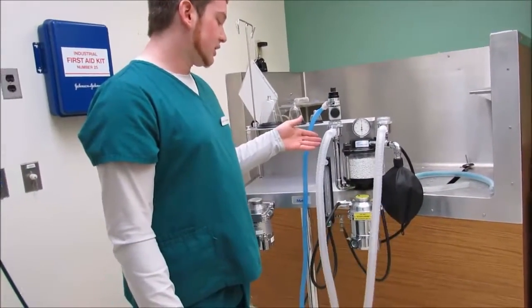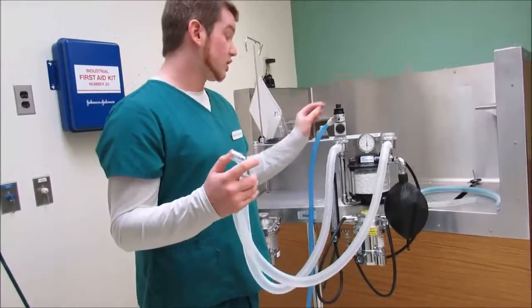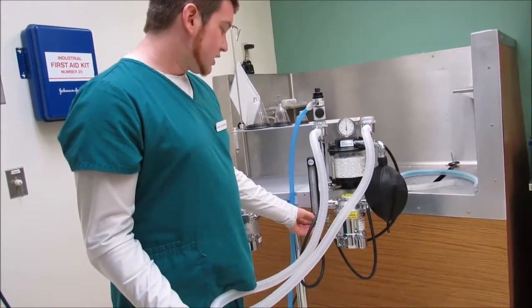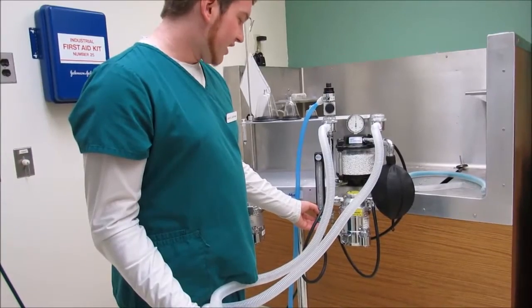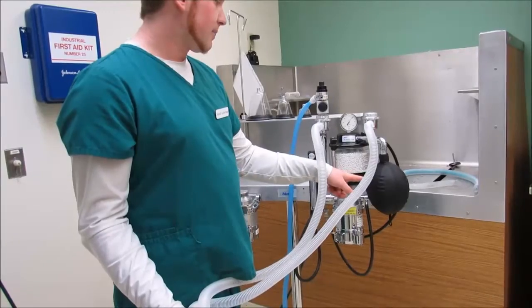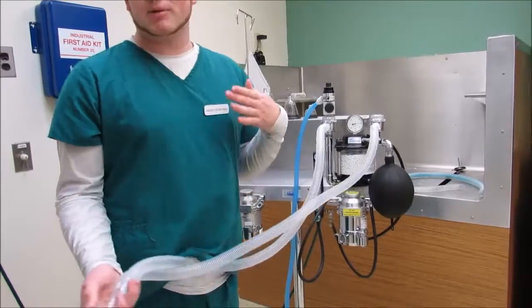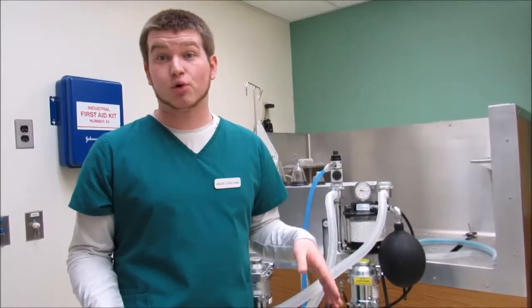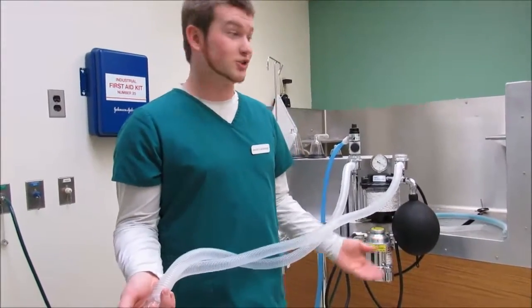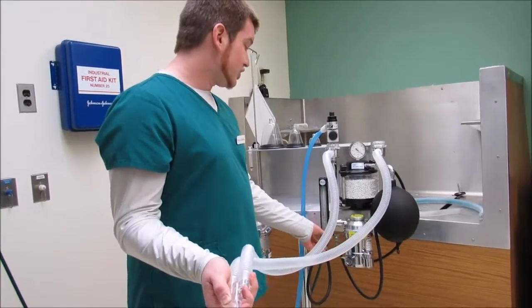So then the next thing you're going to do is run your system, make sure that your pop-off valve is still closed, and you're going to turn it up to about 5. Okay. So since I have the pop-off valve closed, it's just going to go up to here. Now notice how the ball is not dropping, so this means that we have a constant flow of oxygen. This is very important because if we didn't, then the ball would be dropping and then the patient would not be getting proper oxygen. So we notice that that's okay. So we can go ahead and just turn this off.